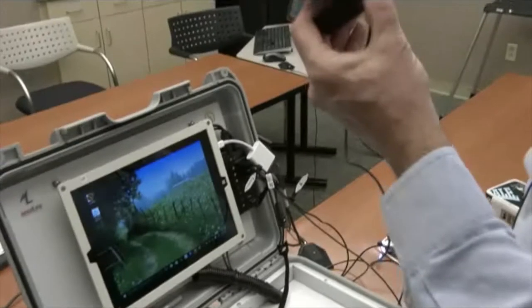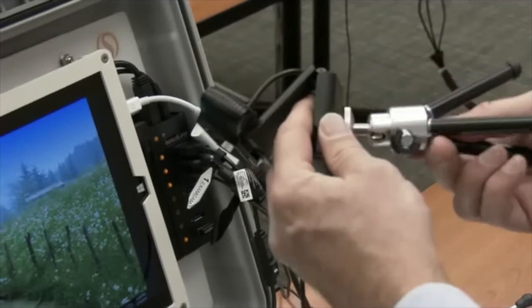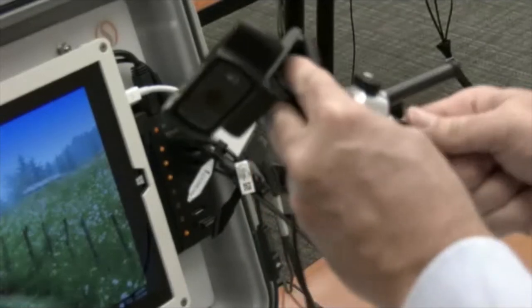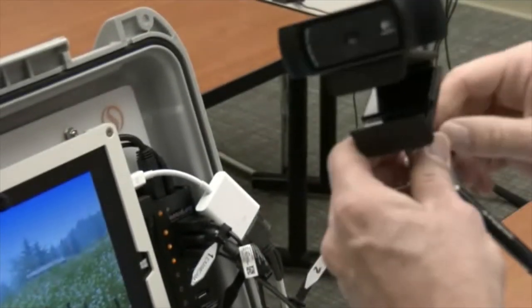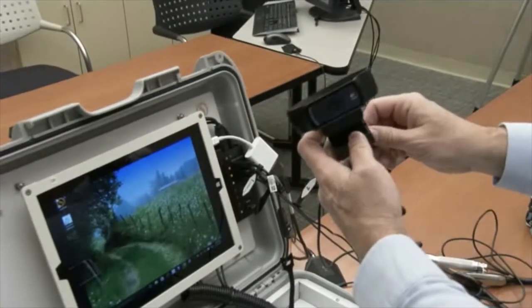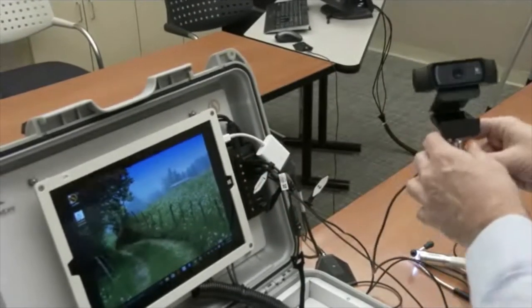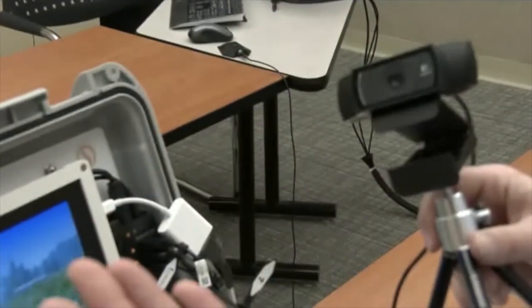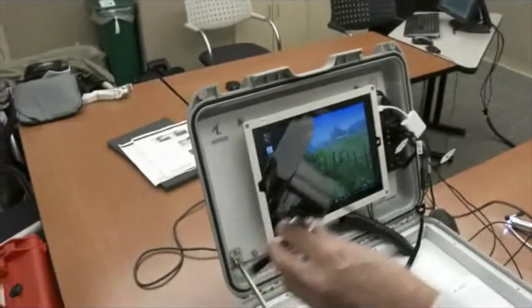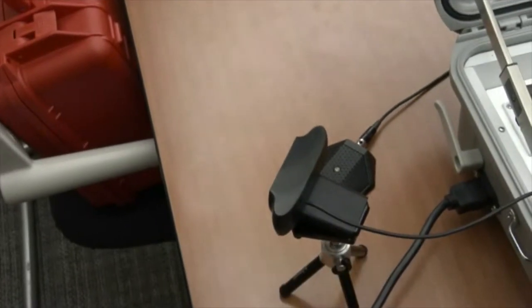The second camera is a webcam. This webcam has a little tripod — the webcam has a hole at the bottom and you need to put the tripod in and secure it until it doesn't move anymore. Then you can adjust the legs and the top, decide what position you want, and lock it. We call this the patient camera. If you have a patient, you can point it to the patient — put it on the desk or close to the patient and point it at them.